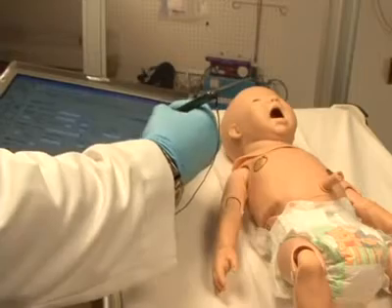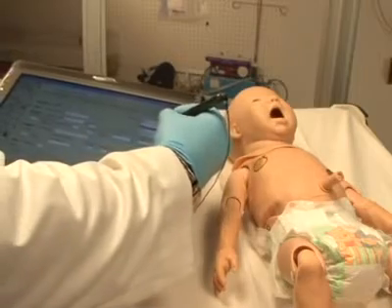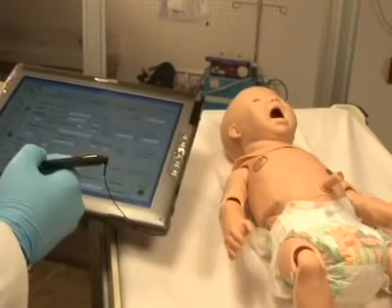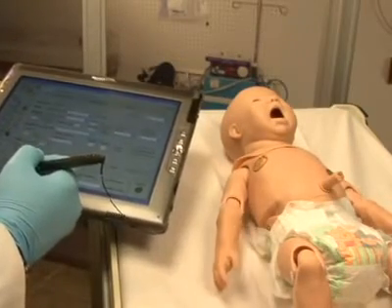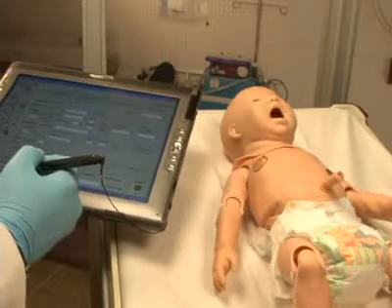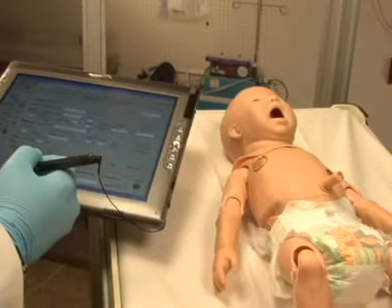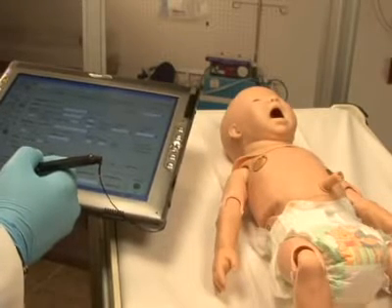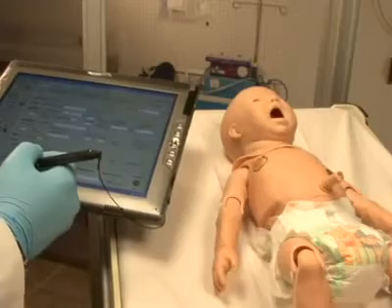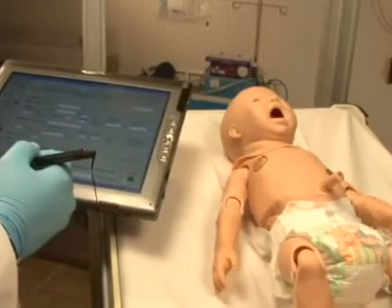Newborn HAL's control software is easy to use and intuitive. The tablet PC can be carried like a notebook, and one-handed operation with the stylus adds to the portability of the system.